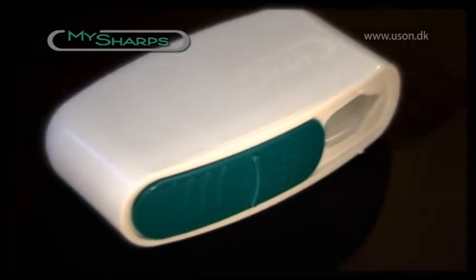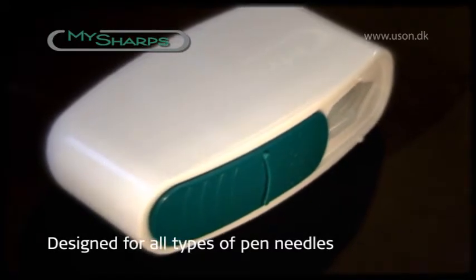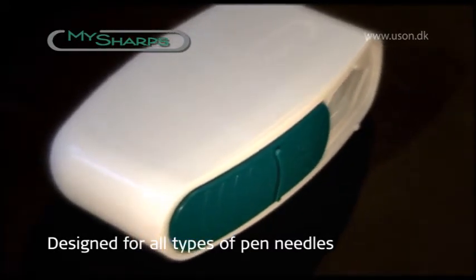It can be disposed of safely with other household waste and is designed for all types of insulin pens and needle sizes.